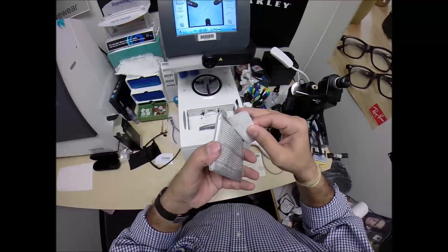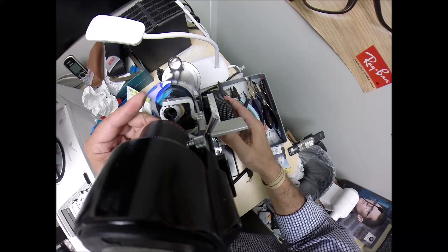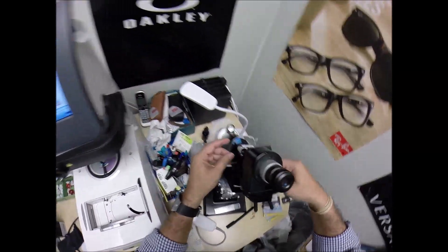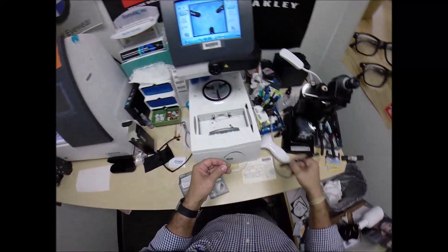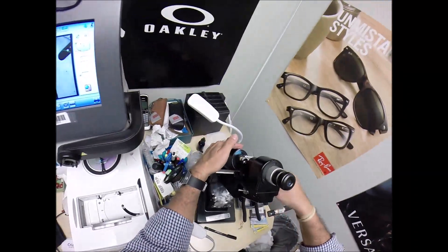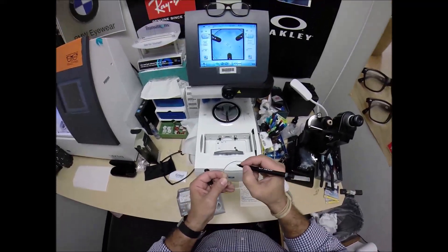Take the lens out of the protective packet. Take the laminate off the front. Power drum is on 2. Rotate the lens until the spherical component — the minus 2 — comes into view first. Check your astigmatism, make sure that's lined up perfectly. My little eyepiece is getting in the way — this thing is stubborn. Bit of a perfectionist; you only get one chance to do it right. It takes me a few extra seconds to stop mayhem from happening, but I'm glad to do it.